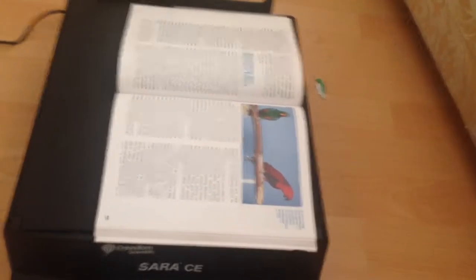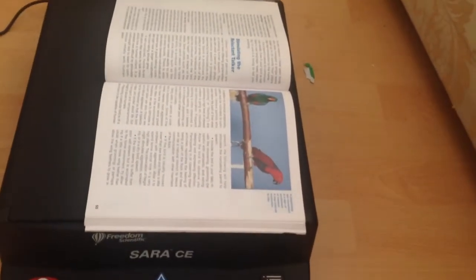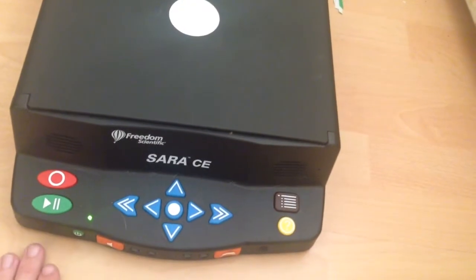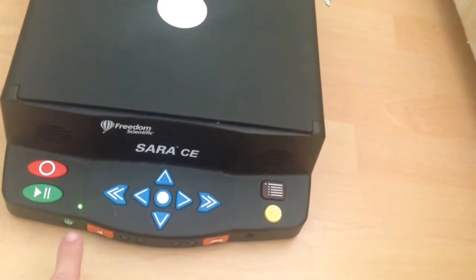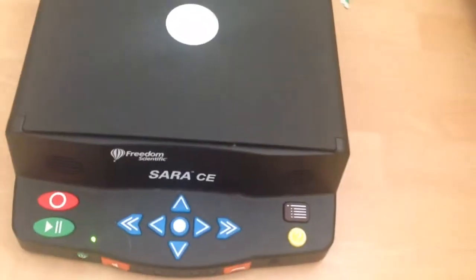"If you want to merely mimic a recording, that might be the most effective way to accomplish that objective. However, the potential for damage is greater than the perceived benefits — having to listen to the same 20 seconds of material over and over can stress the bird and contribute to screaming, unexplained aggression, self-mutilation, or intellectual withdrawal." The little chime you heard is when I remove the document — that tells it it's going to read another page.